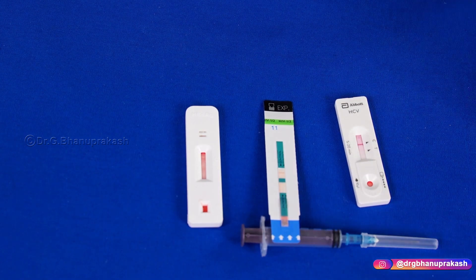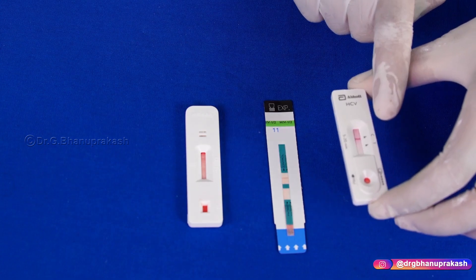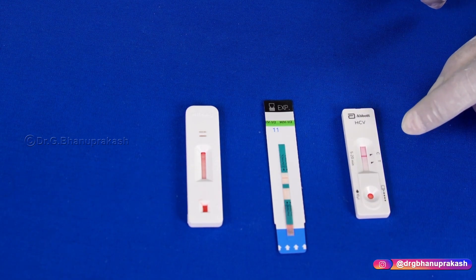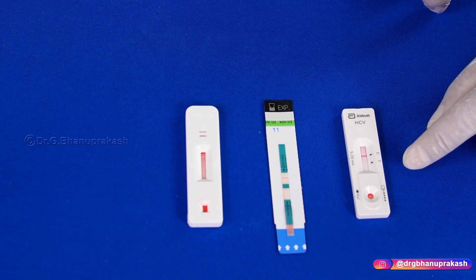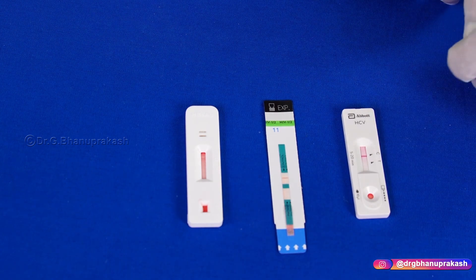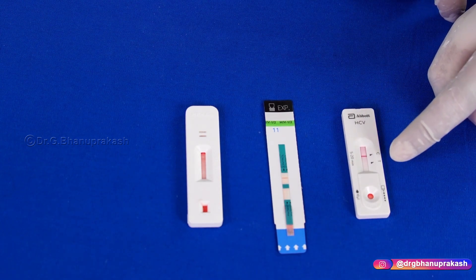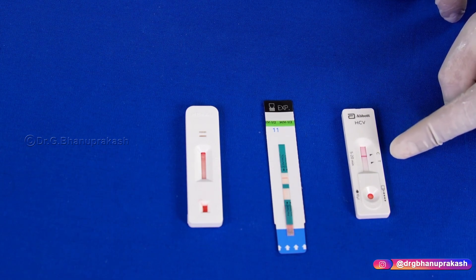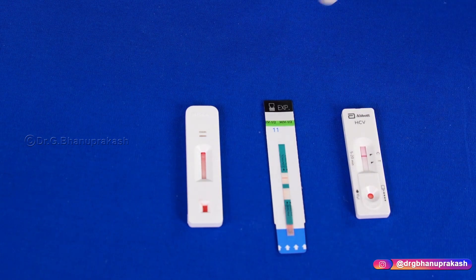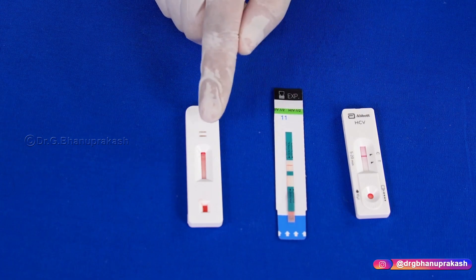We are almost done with the test. One basic rule to understand is that you find two alphabets on each kit: C and T. C stands for Control and T stands for Test. If you find a line near both Control and Test — a double line — it means the test is positive. For example, a double line on the HCV kit means the patient has HCV virus. The same applies to the HIV kit and the HBsAg kit.